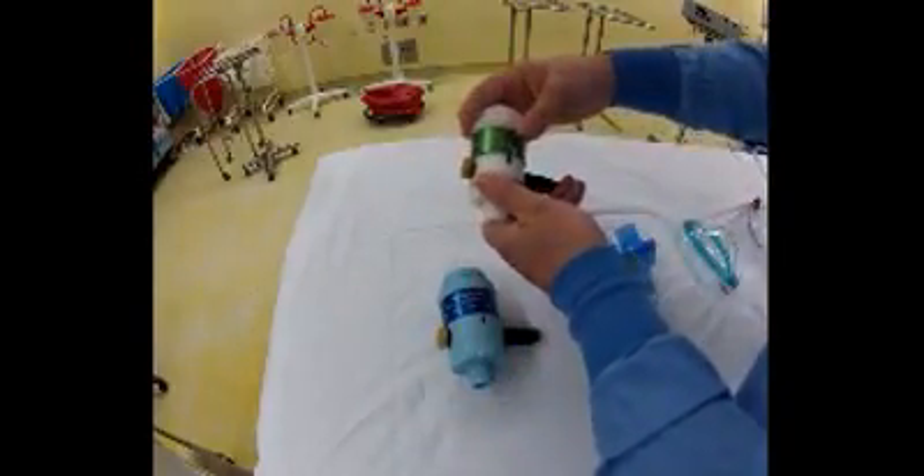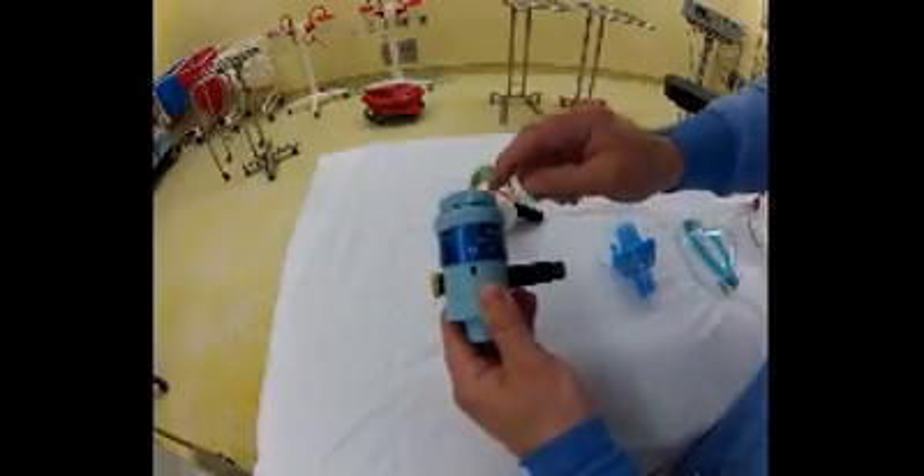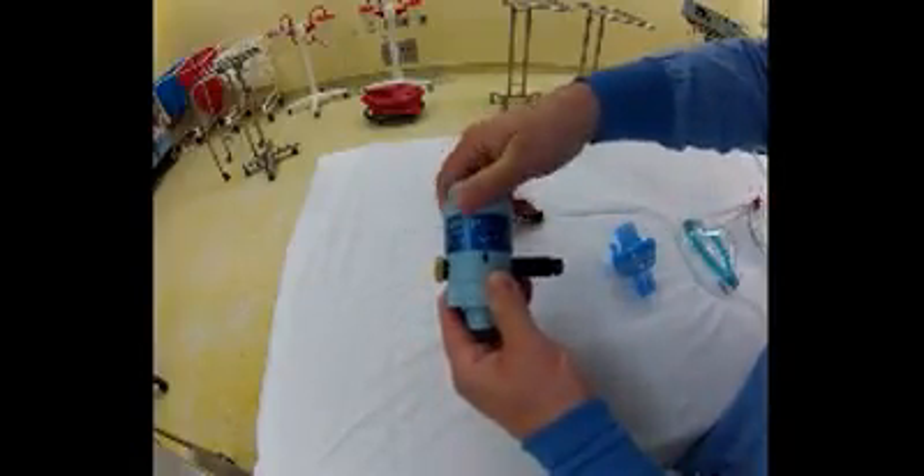The HD has a pressure release range from 15 to 30. And the EMX, which is a pre-hospital paramedic model, ranges from 20 to 45 centimeters of water.